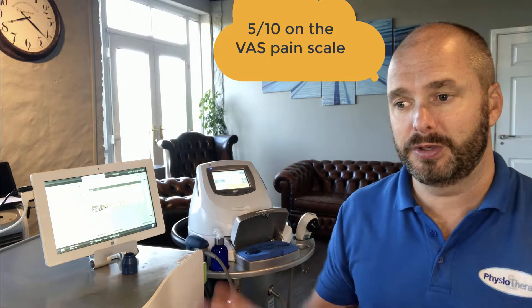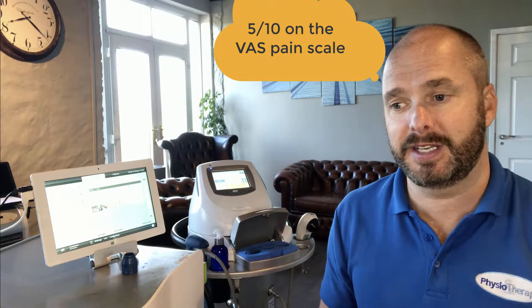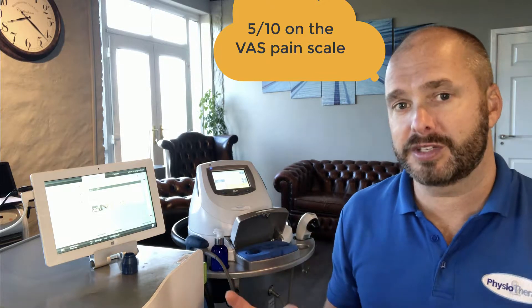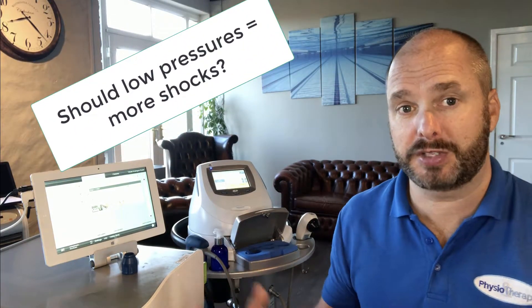There are people who push for higher bar pressures and energy flux density, arguing that more pressure gives greater depth in the tissues, and I can't say they're wrong. From the research I've seen and my clinical experience, results don't seem to differ dramatically, and when patients find treatment more acceptable from a pain level they tend to come back. I don't see a change in efficacy, however if you use really low pressures you may need to do more sessions or more shocks.